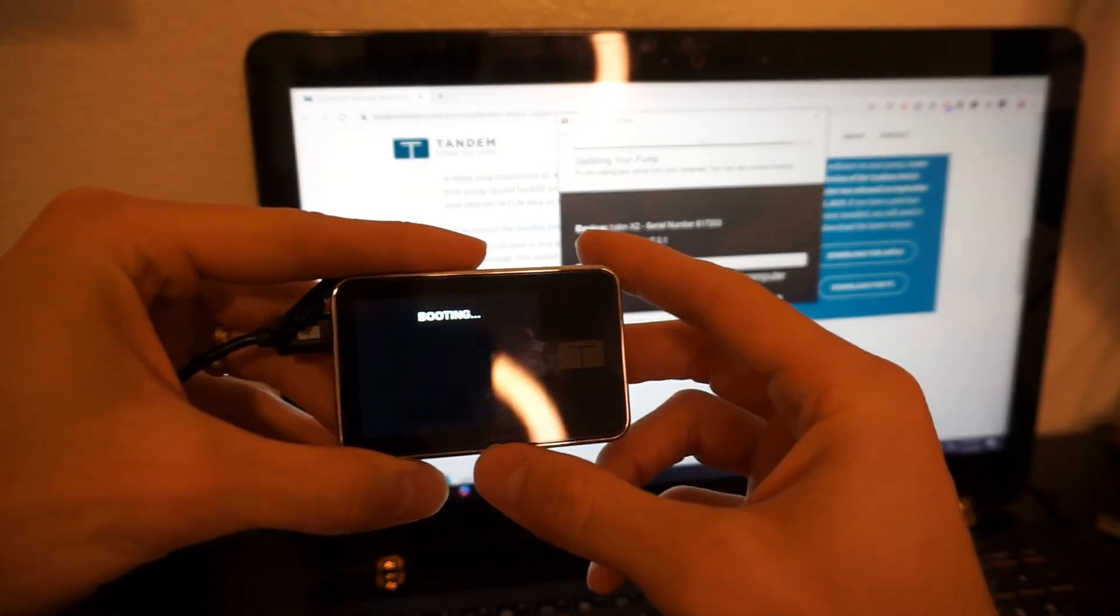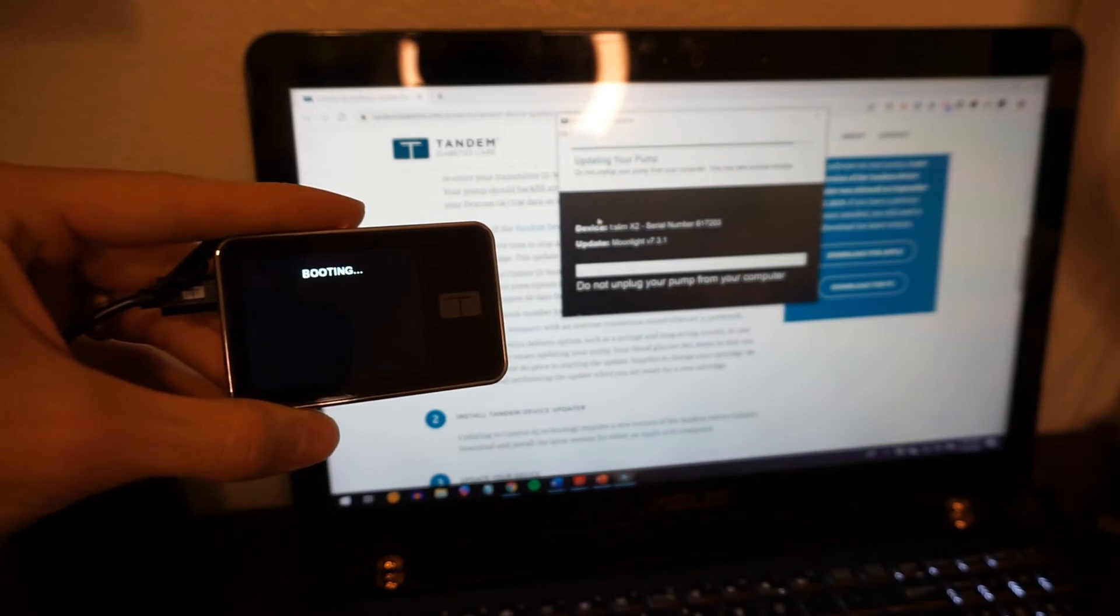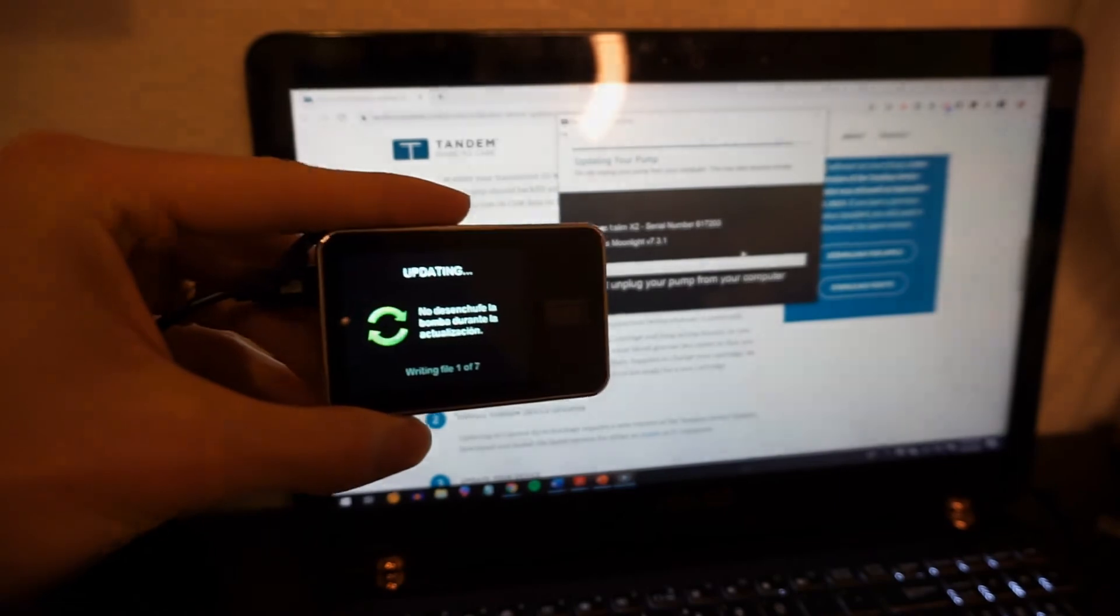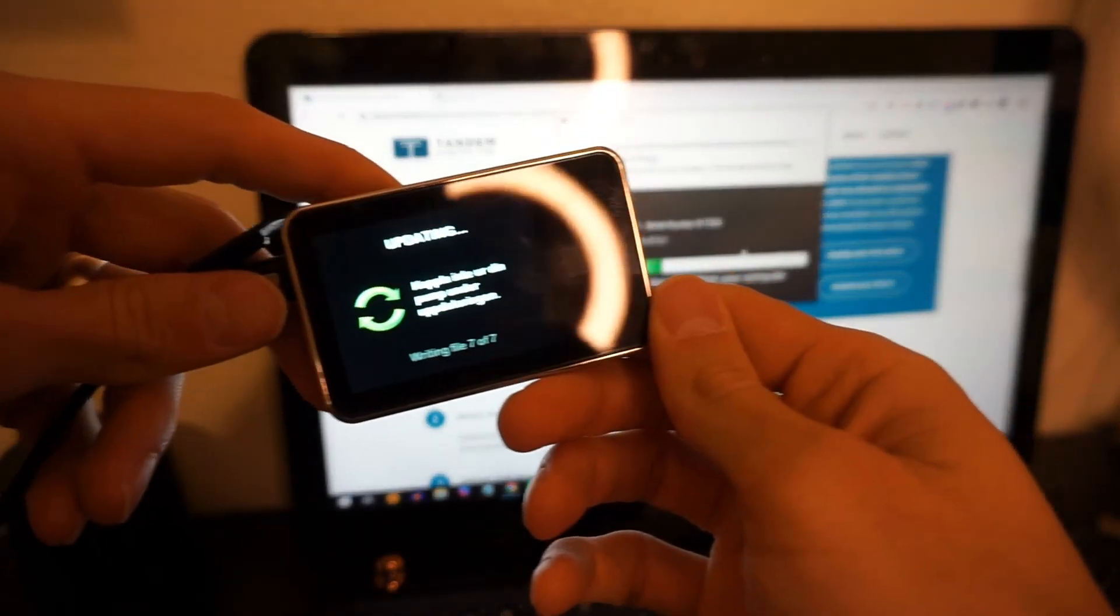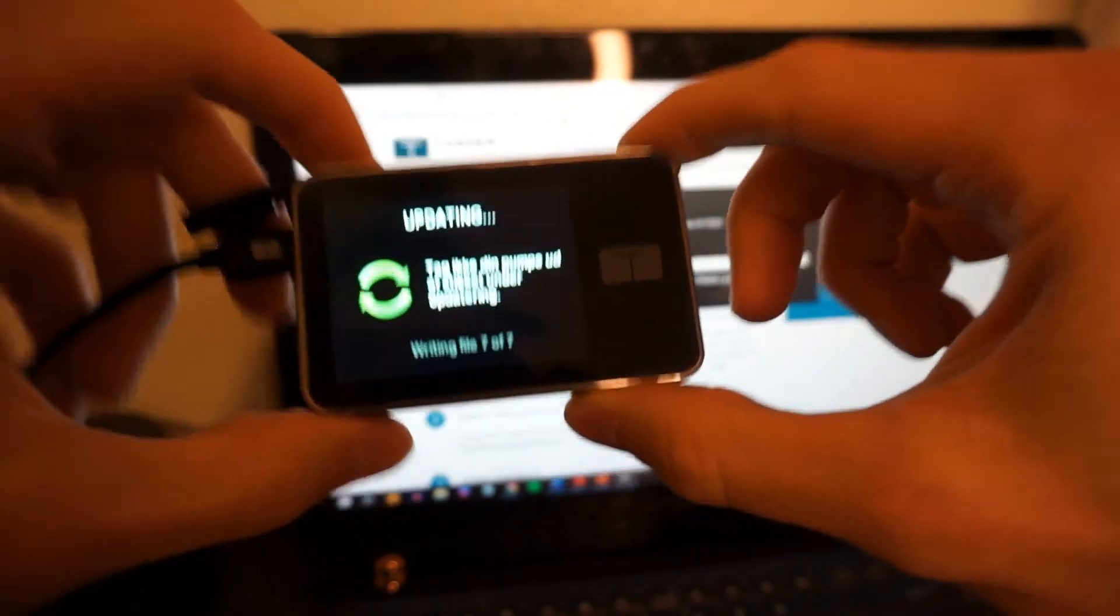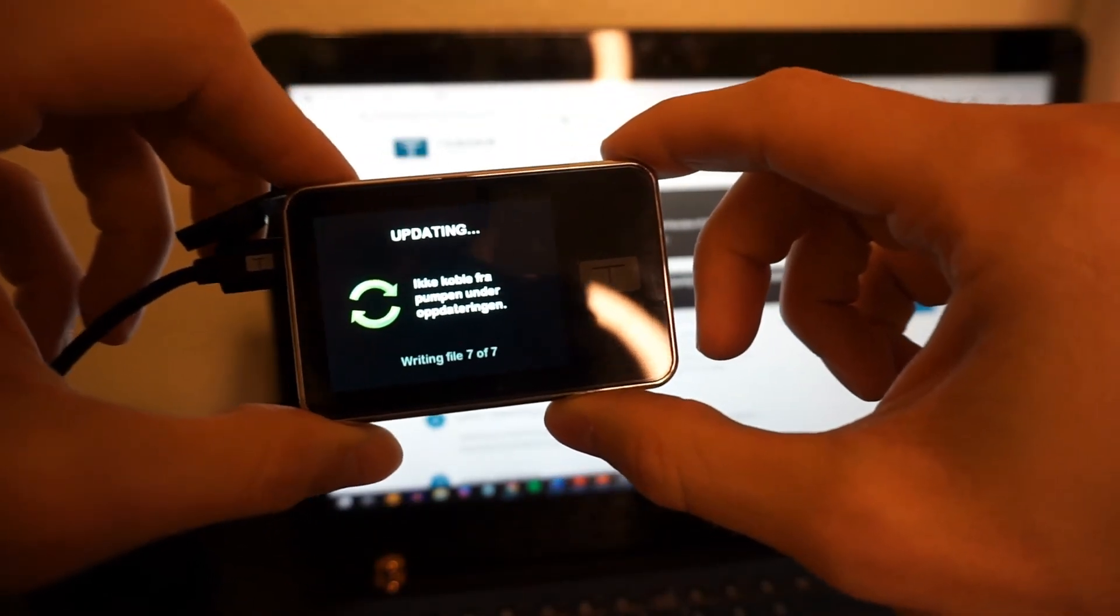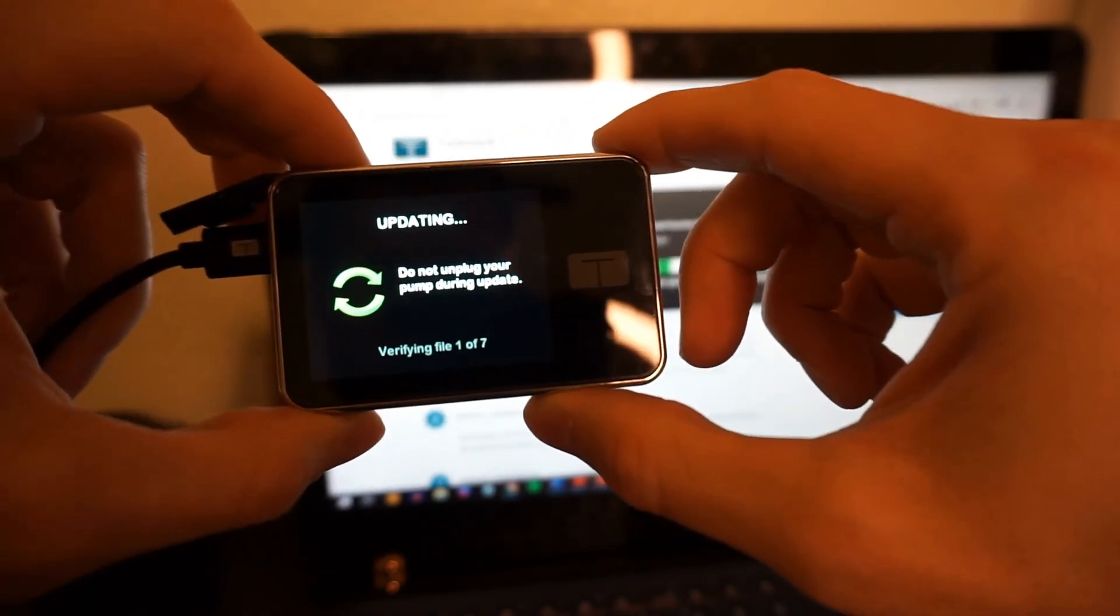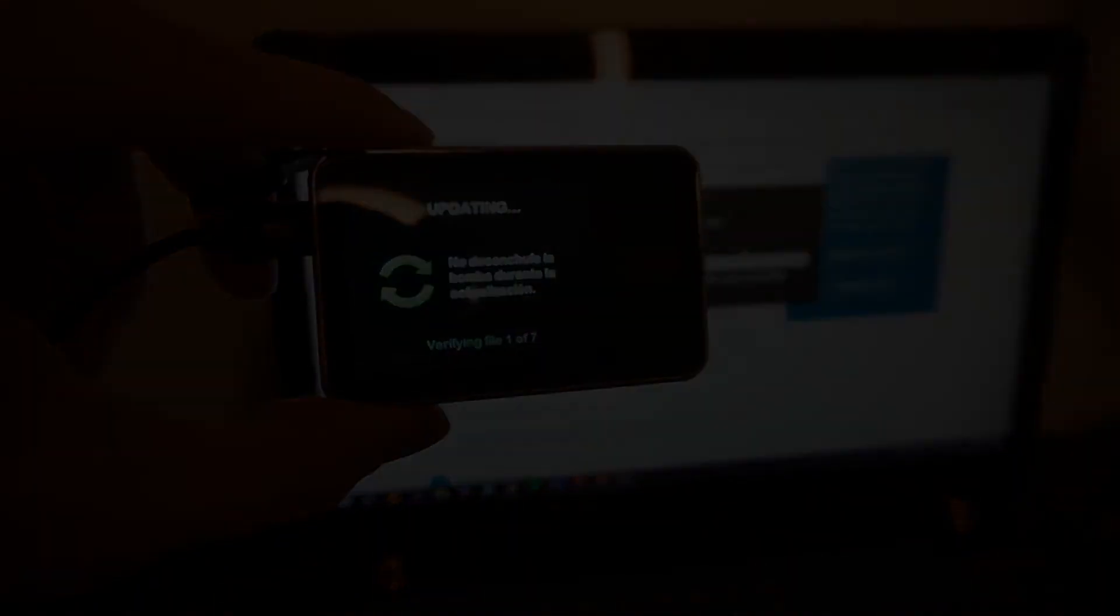Sounds are being made. Booting. Oh, it's starting, guys. Ooh, update's called Moonlight. That's kind of awesome. Sweet. Let's do this. We are on step seven of seven. Maybe I'm going to catch the final. It's all different languages. That's interesting. If it's going to give me the final... Oh, now we're verifying files. Okay. We're still going. Let's pause that.